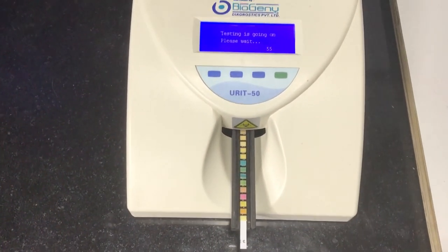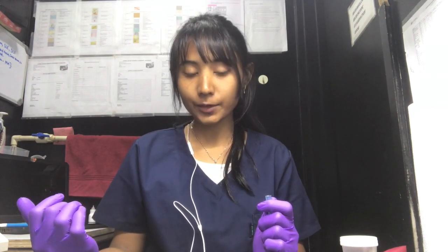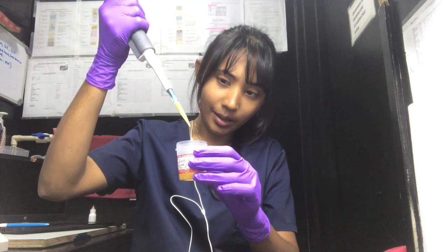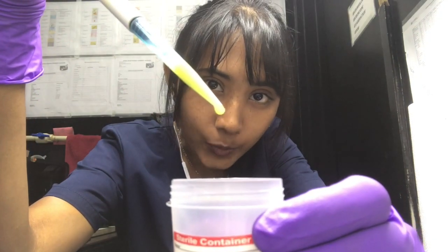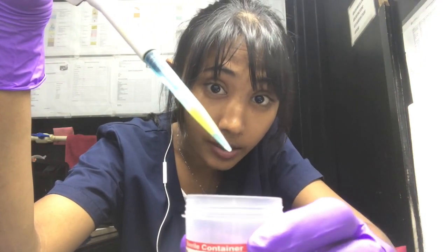The machine is going to give me the result in one minute. While the test is going on, I thought I'd show you something quickly. Take your urine sample, pipe it out, and try to drop it. I don't know if you can observe the viscosity — this urine is really really viscous. Can you see it?